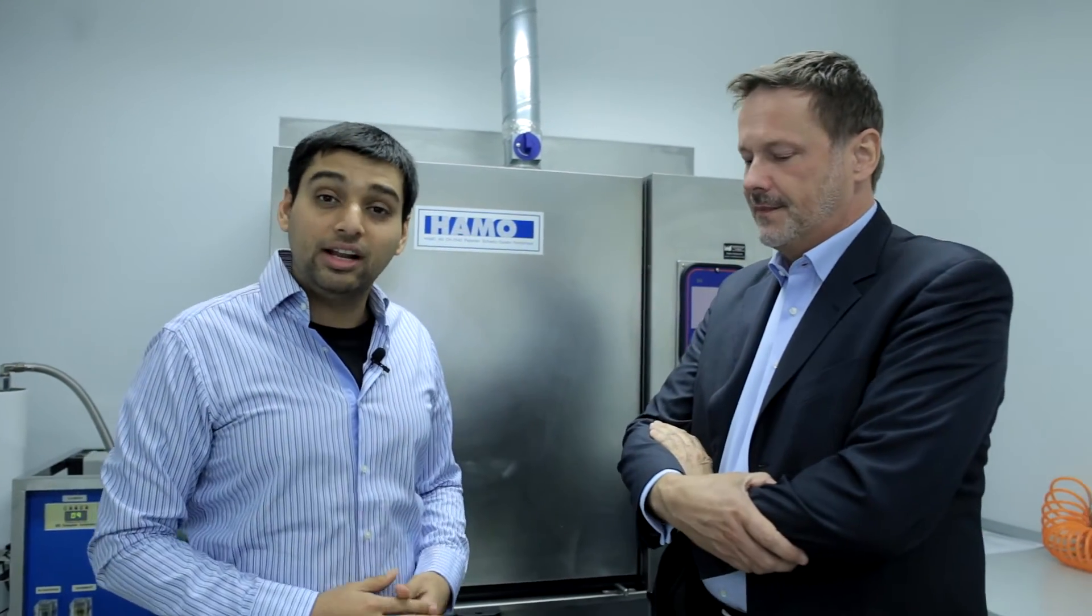So after the sandblasting, now we are here at the washing and the cleaning, the final phases of cleaning of the implant. And for this I would like to introduce Dr. Dudek. He is a specialist when it comes to the cleanliness of implant surfaces and he would tell us a little bit more about his work and what he feels about our implant surface.